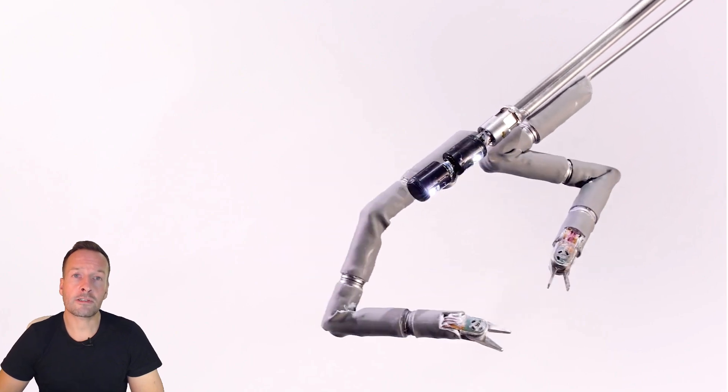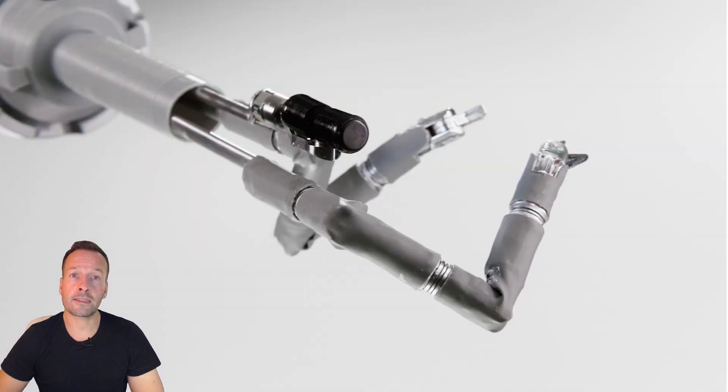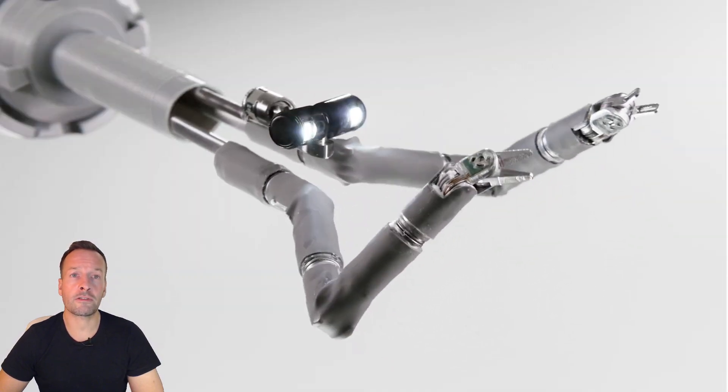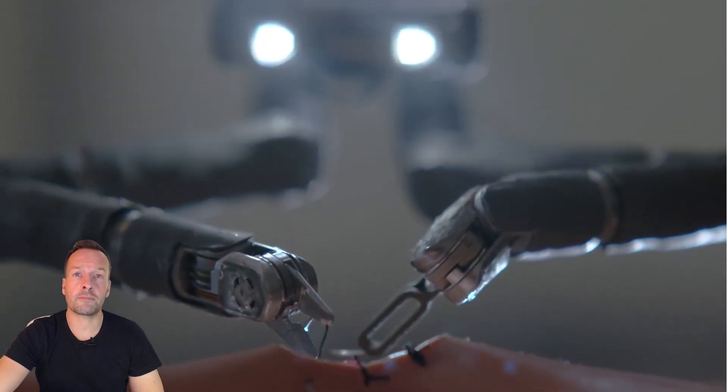In essence, Vicarious Surgical is not just advancing surgery techniques; they are redefining the future of healthcare by combining cutting-edge robotics with a commitment to improving patient outcomes. They're paving the way for a new era of precision and accessibility in surgery.